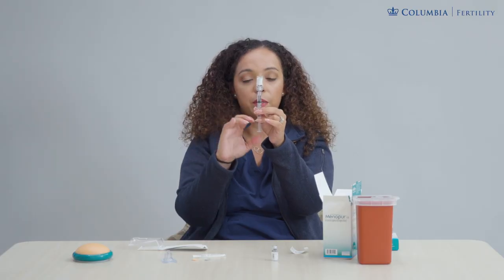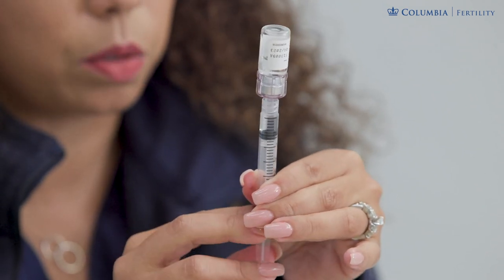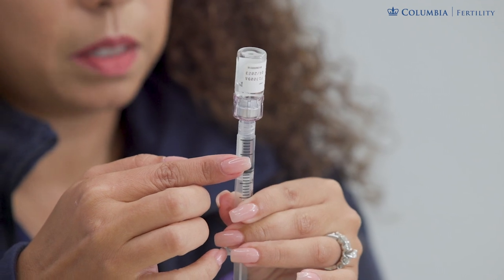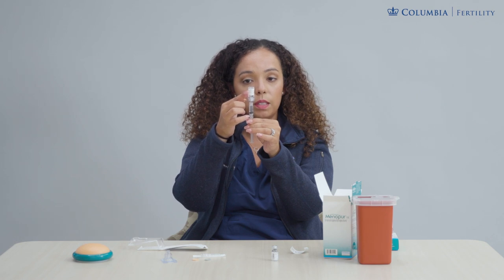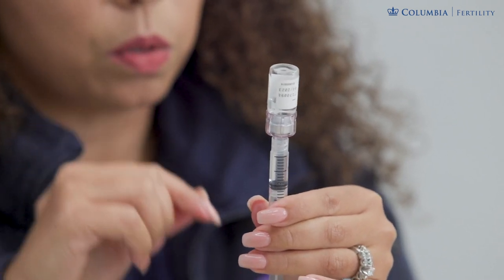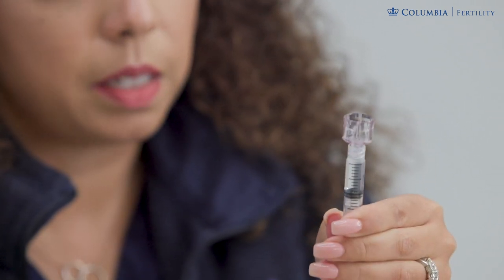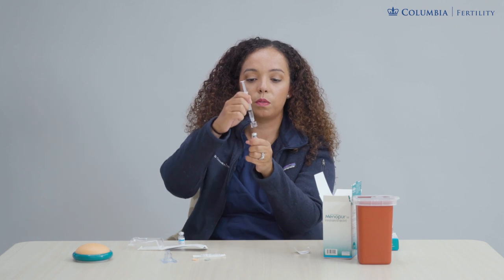If your syringe is not adequately filled, do not be scared — you can push everything back in and start over until you adequately fill your syringe to the one milliliter line. Once your syringe is full of one milliliter, you no longer need this liquid vial. To remove the liquid vial from the Q-cap, hold on tight to your syringe in the middle, grab the liquid vial, and pull straight off.